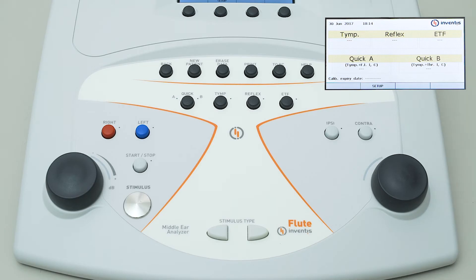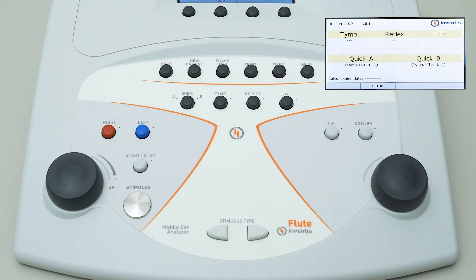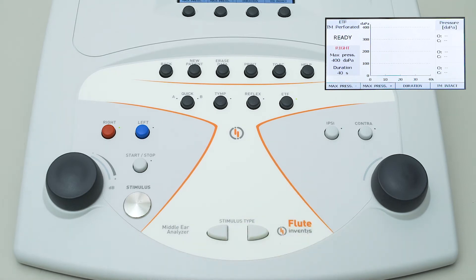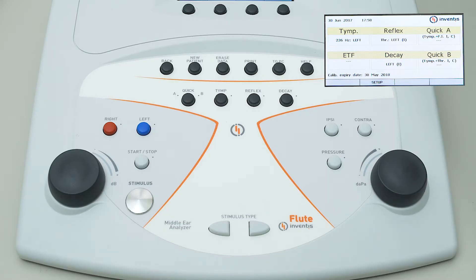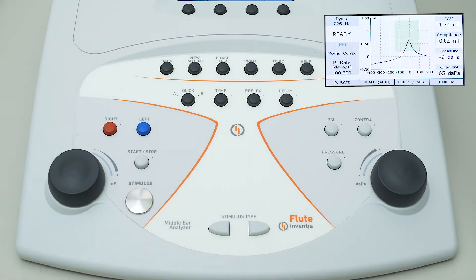Access the Eustachian tube function with intact eardrums by simply pressing the corresponding button on the keyboard on flute HF. Function button 4 is then used to switch between ETF for intact eardrums and perforated eardrums. On flute plus models, it is possible to access the ETF for intact eardrums from the tympanometry test window by pressing the dedicated function button.